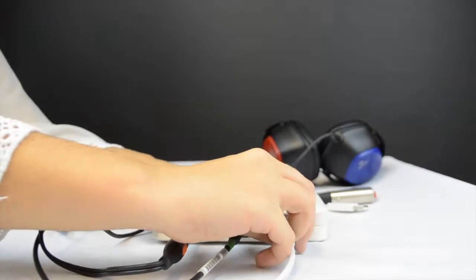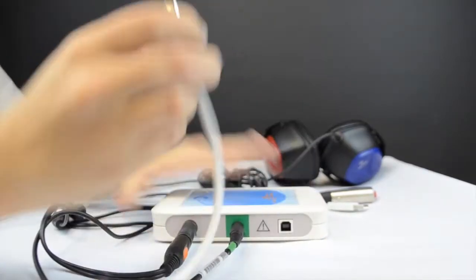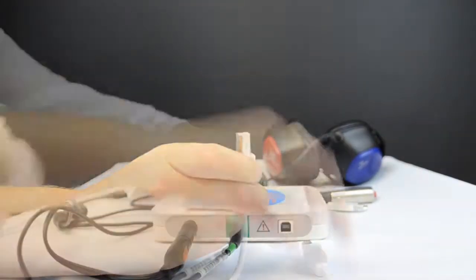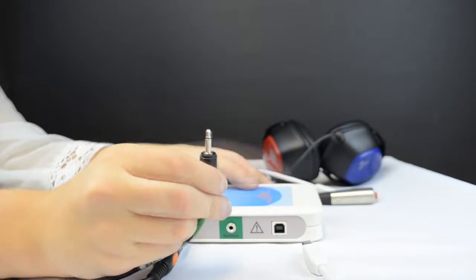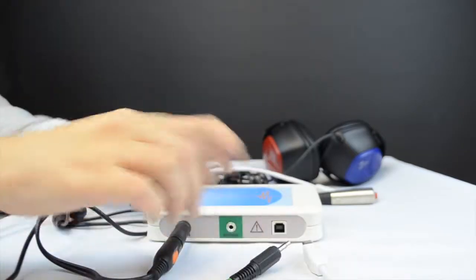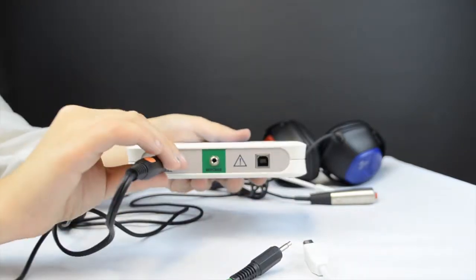Once the test has been carried out, safely remove each of the cords and return them to the hardcover case.